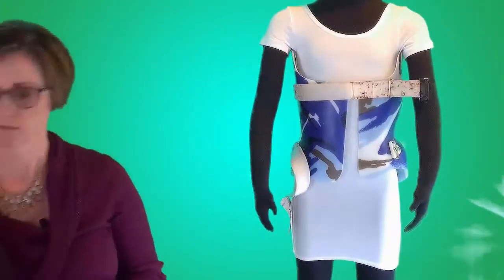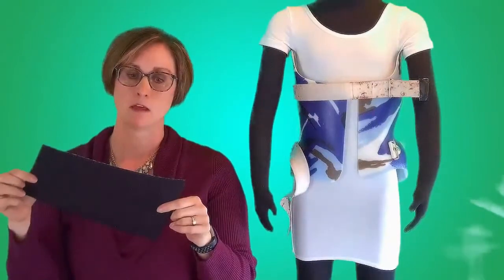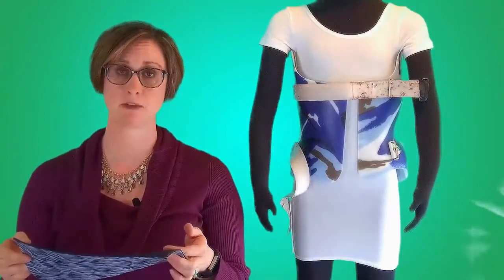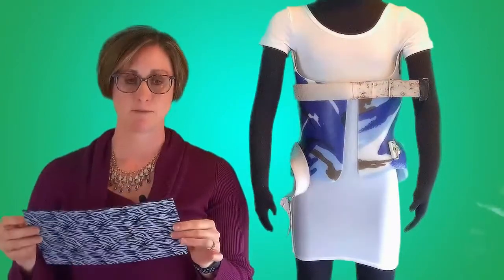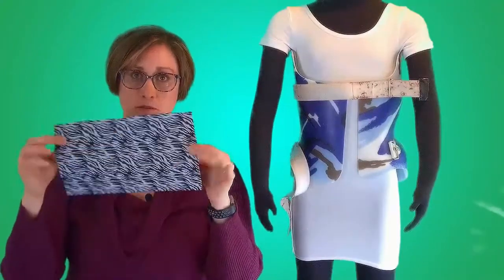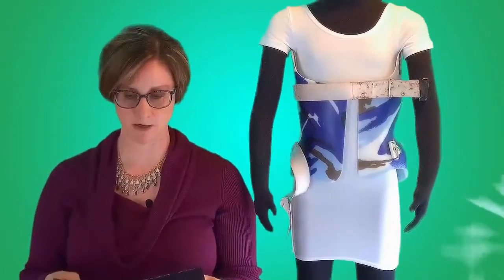Now, if you don't have access to neoprene, it can be purchased online — various websites will sell it, many times in larger sheets. It's not inexpensive, however. If you contact me, I can also send you a cut of neoprene with your next order or as a separate order from the stock that I have here.